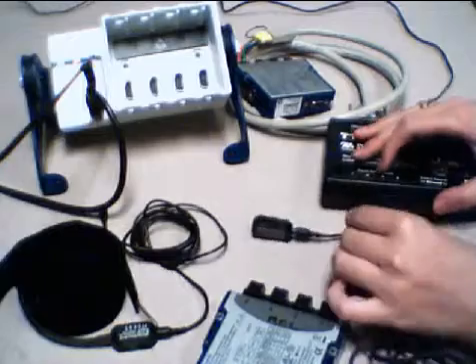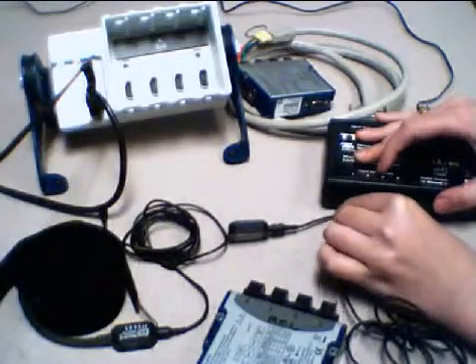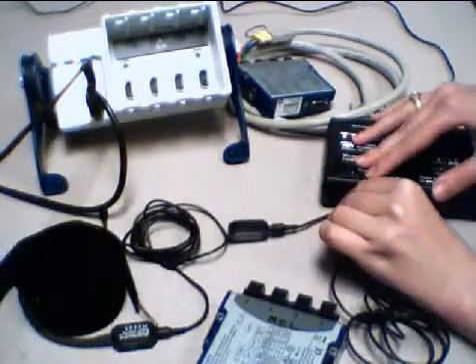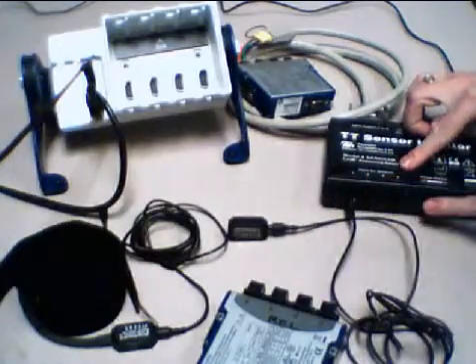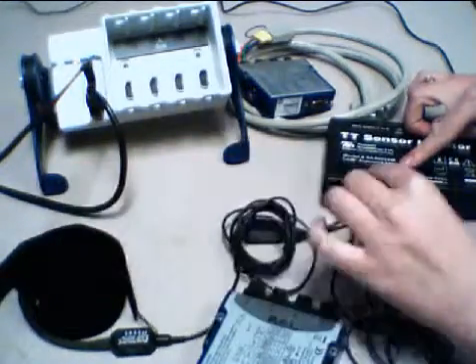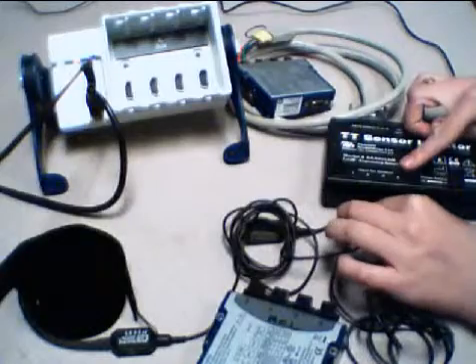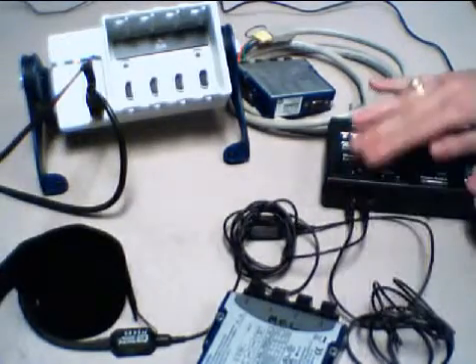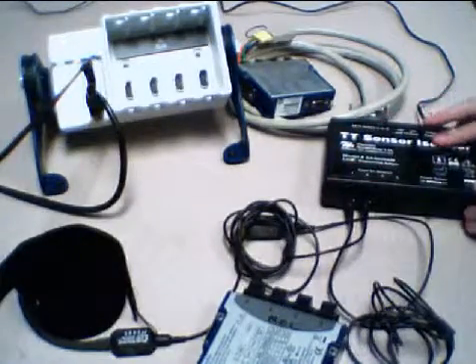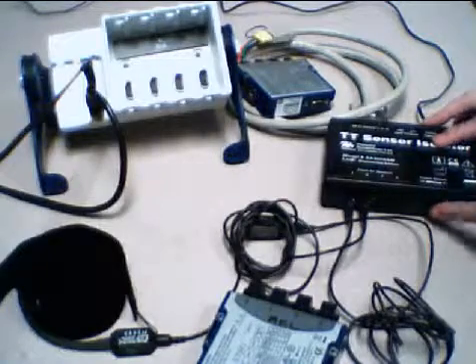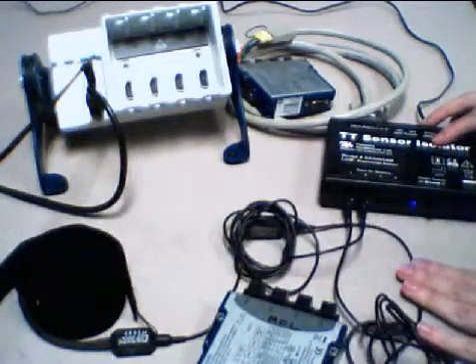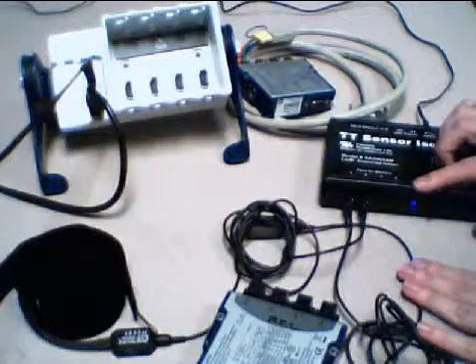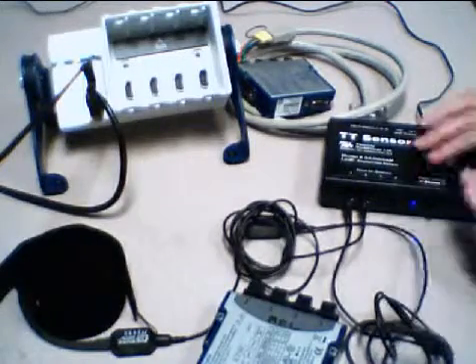The front end of this isolation sensor is going to be powered with a 9 volt battery. Let's go ahead and connect the heart rate sensor to channel 1. You'll notice it has four channel inputs here at the front. I'm going to connect the respiration belt to channel 2 of the isolation device. Now I'm going to flip the switch to power the sensors to excite them with that 9 volt battery. You'll notice the blue light has come on.